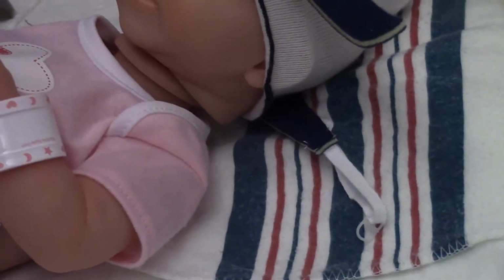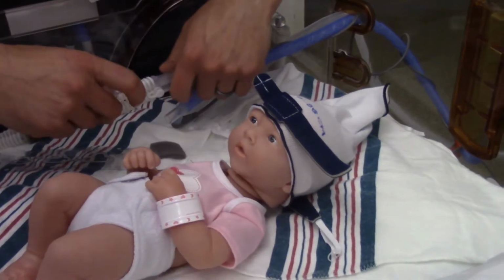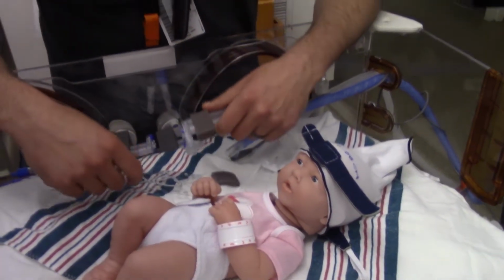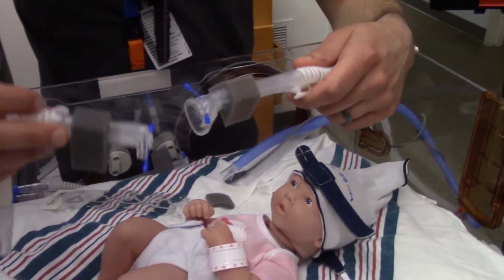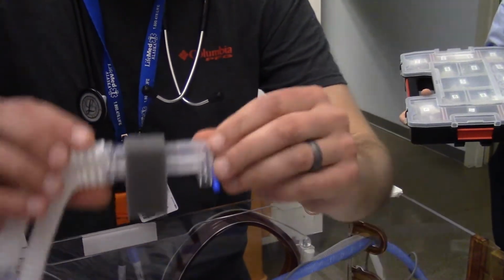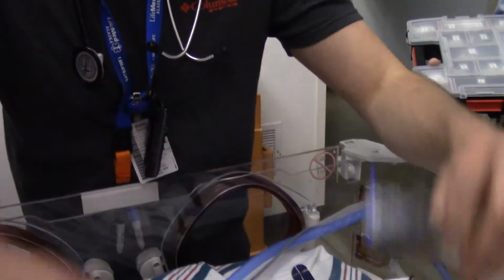So next step, figuring out the trunk. This is one of the most important steps and one of the steps that gets forgotten the most, and like I say, it's one of the most crucial and valuable steps. So how we're going to measure the trunk. We have three different sizes here. We have a 70, a 50, and 100, okay? And those are in millimeters.